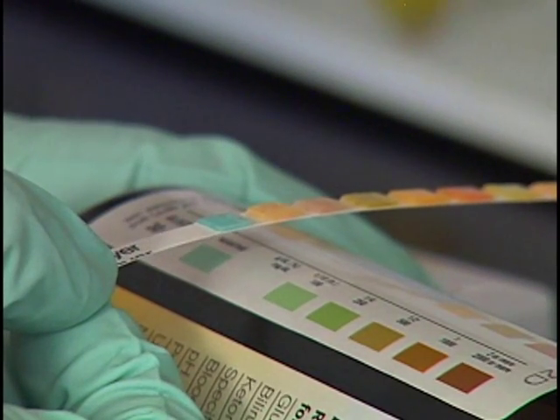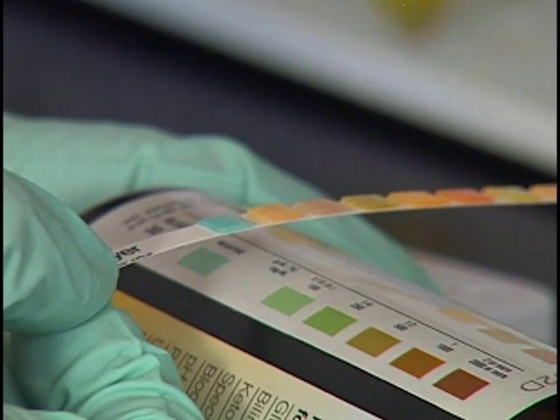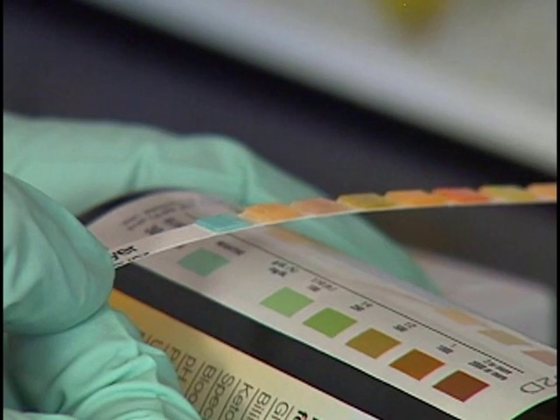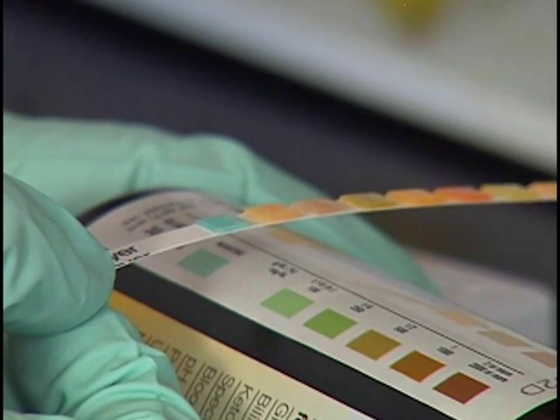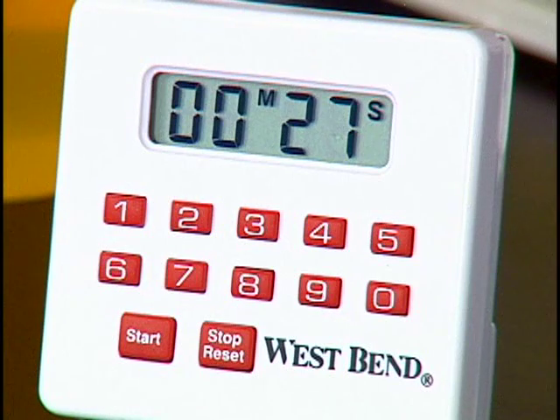Glucose is the first test to be assessed. Place the glucose reagent pad as close as possible to its corresponding row of color blocks on the chart. Do not lay the strip directly on the chart because this would result in the urine soiling the chart.